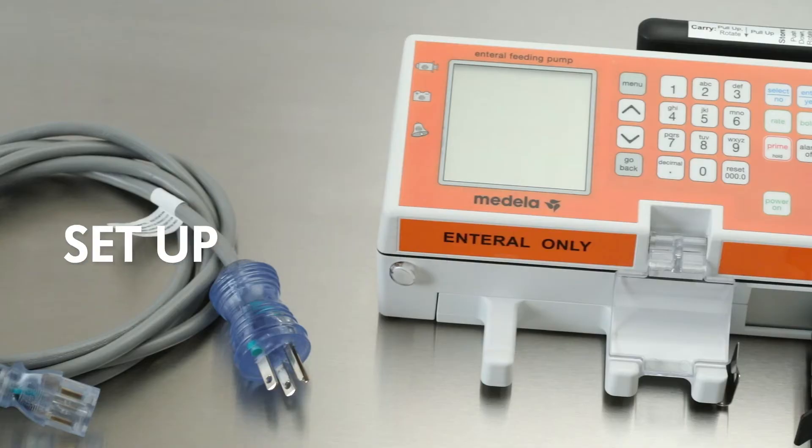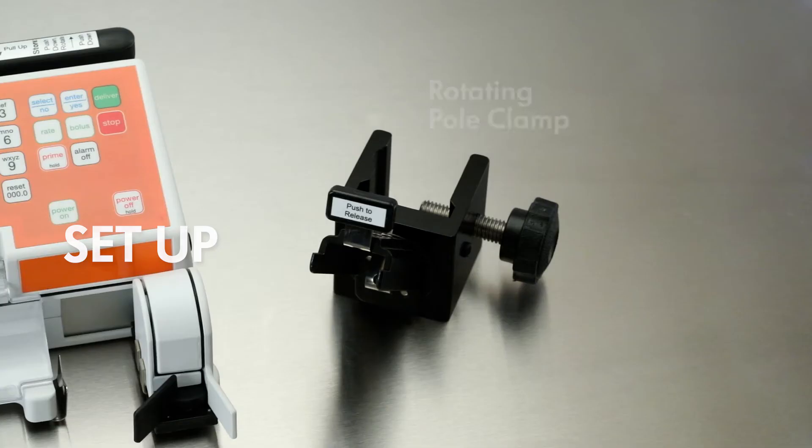The Enteral Feeding Pump includes Enteral Feeding Pump and Power Cord. Rotating pole clamp and accessories are sold separately.